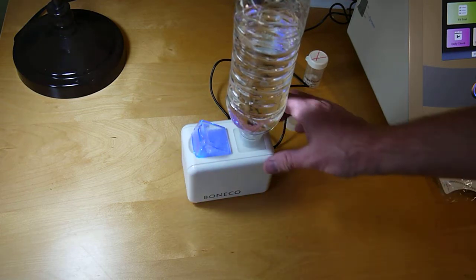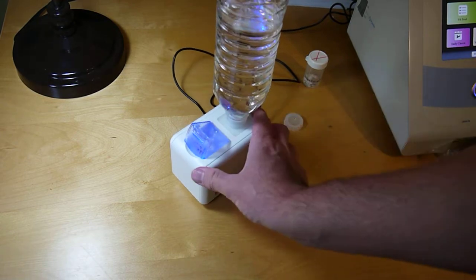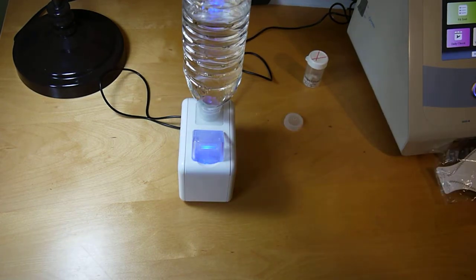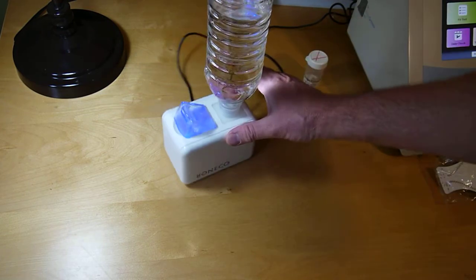You want to let this run for quite a few minutes before you start fit testing because you need to have a minimum amount of particles in the air for the test to work correctly.